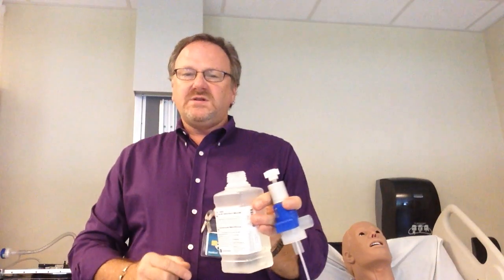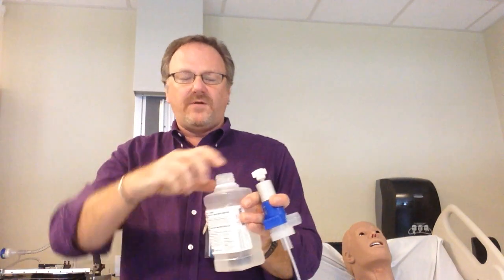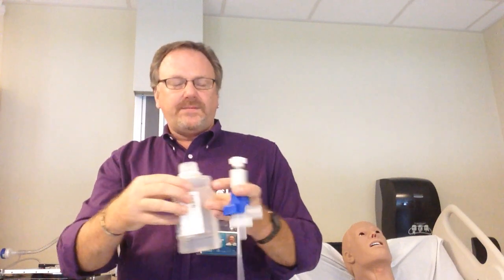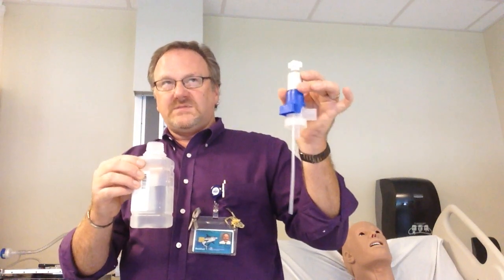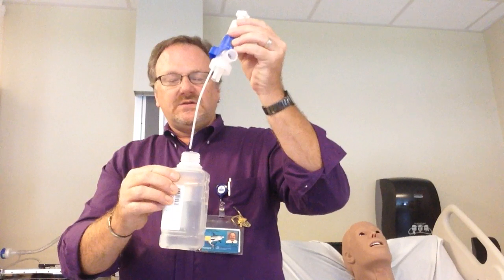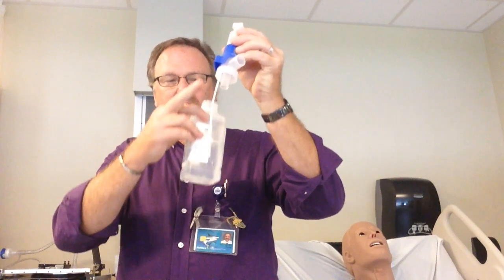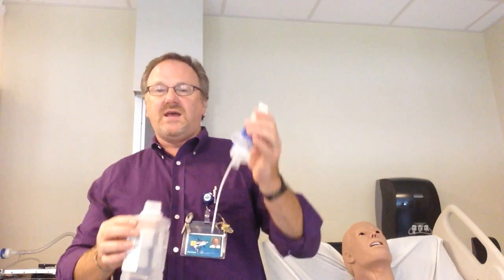This is a large volume nebulizer, used for humidification. This type will come with a cap on it — you twist and it will pop the cap off, then unscrew it. The water comes in a separate package inside the same package. Open it up. Do not touch the hose, as that would cause contamination and you could deliver contaminants to your patient.